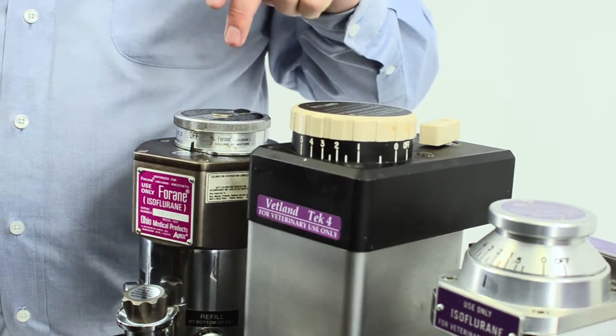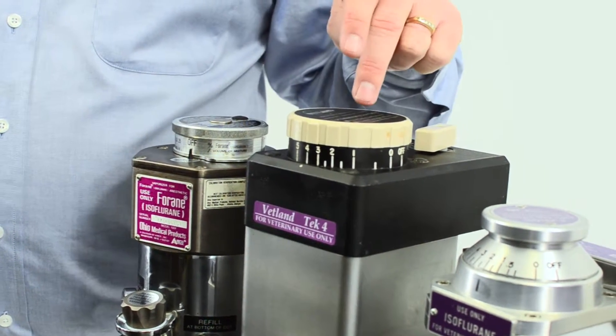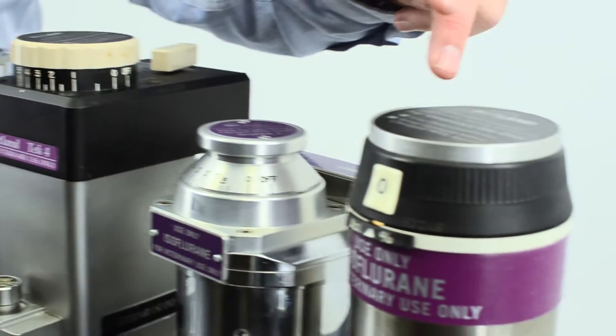Here we have the Ohio vaporizer, the TEC-4, TEC-3, and the D-19.